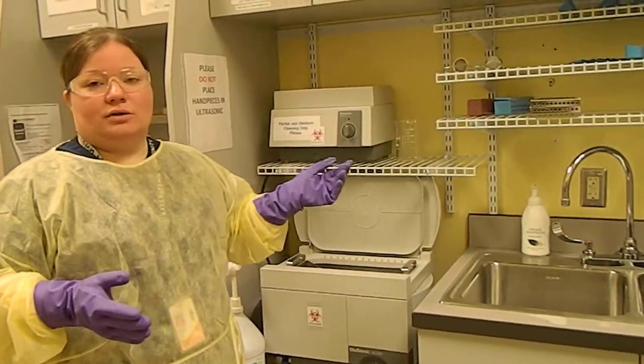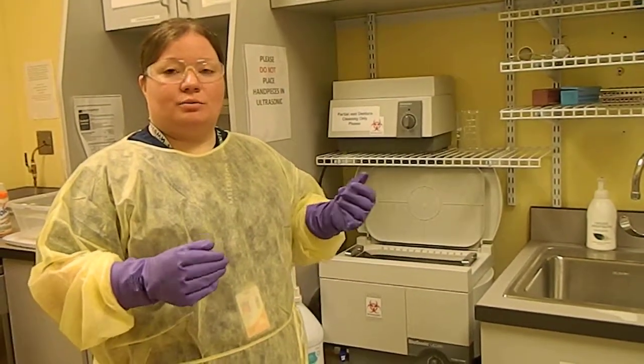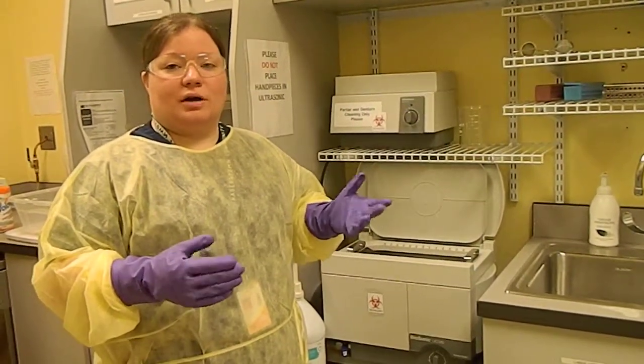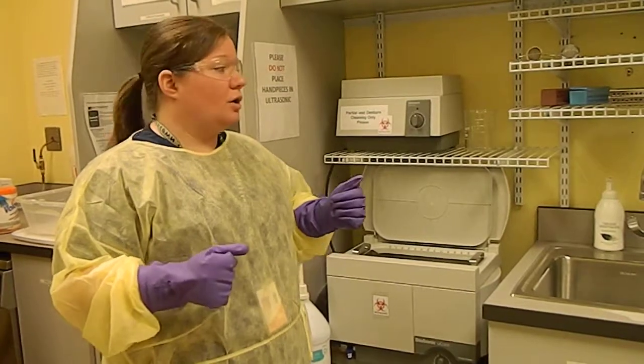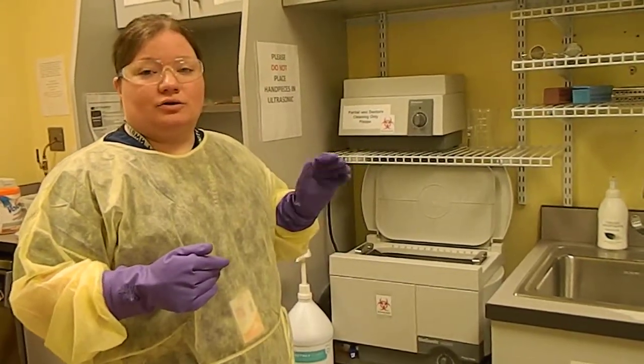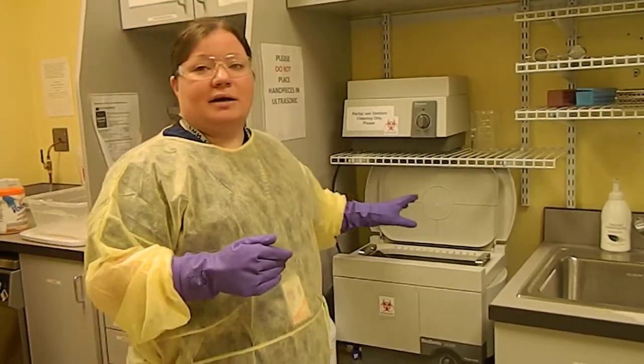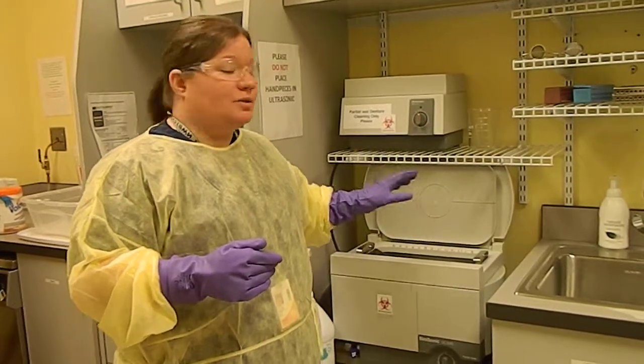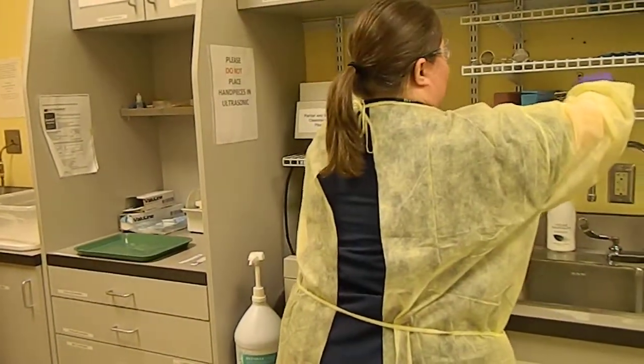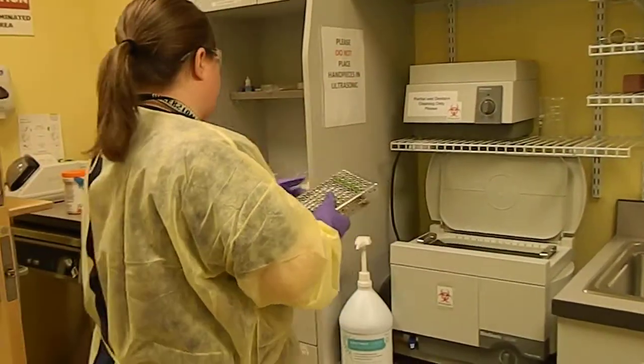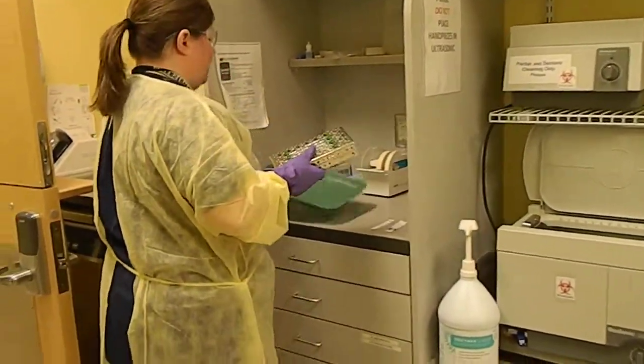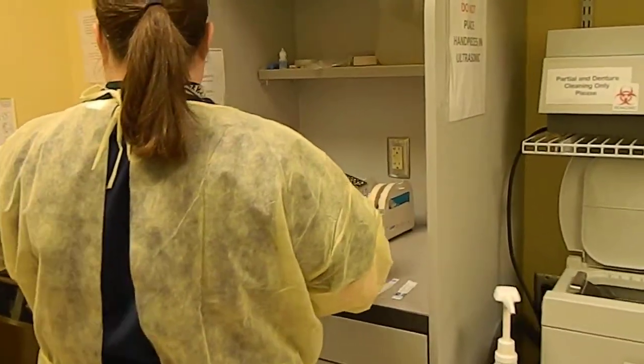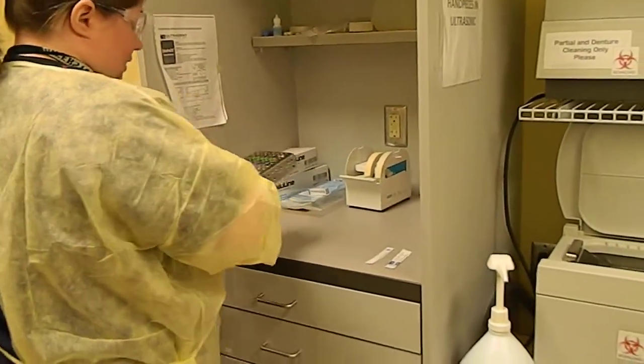Now one thing I do want to note is if there's a large amount of debris on your instruments you will want to have wiped that off with some gauze before you bring it back and put it into the ultrasonic because the ultrasonic might not buzz all of that debris off. So after it's dried we're going to bring it back over here to the dirty side. This is where I'm going to wrap my cassette.